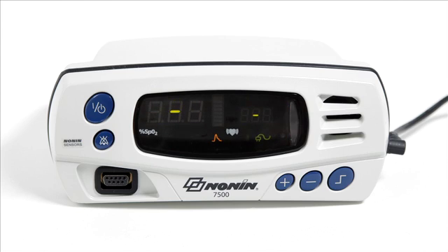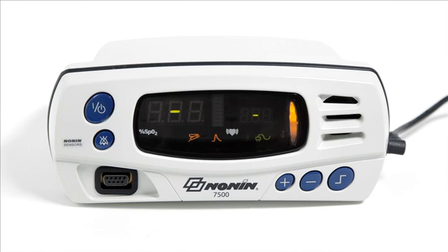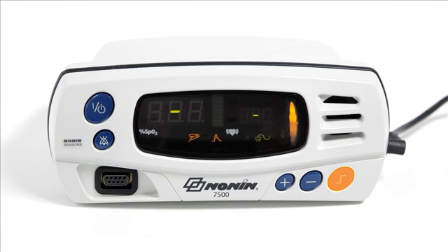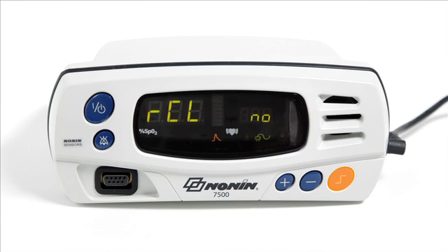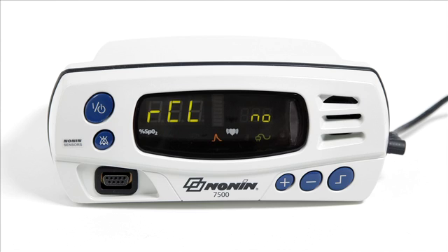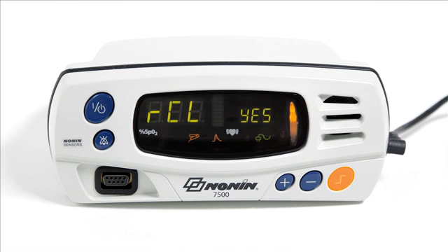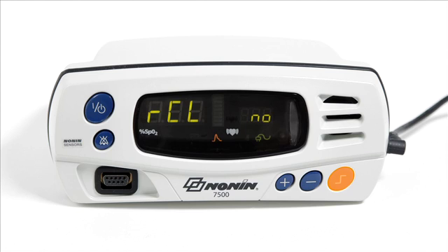During startup, you will have the option to retain the current alarm settings or reset them. To save the current limits, press the limits button — you will see RCL appear on the screen. Press the plus button, and when YES appears, press the limits button again to save the previous settings.